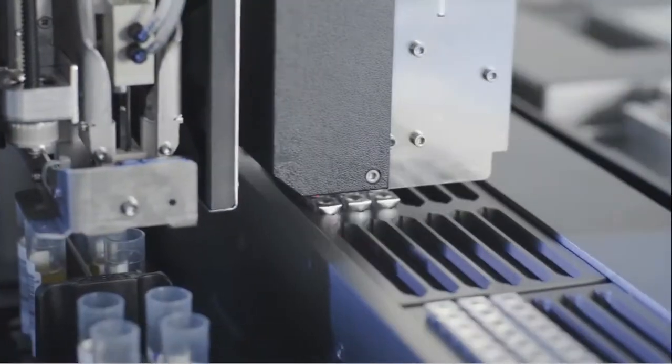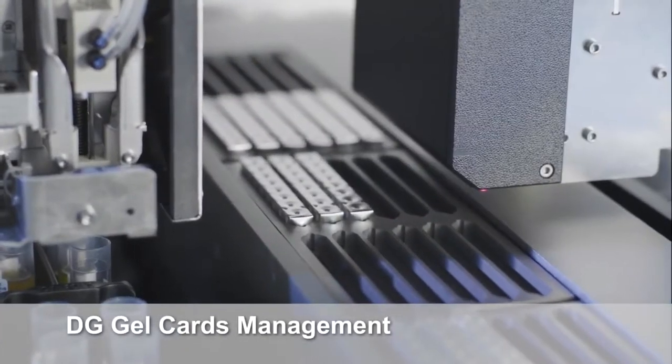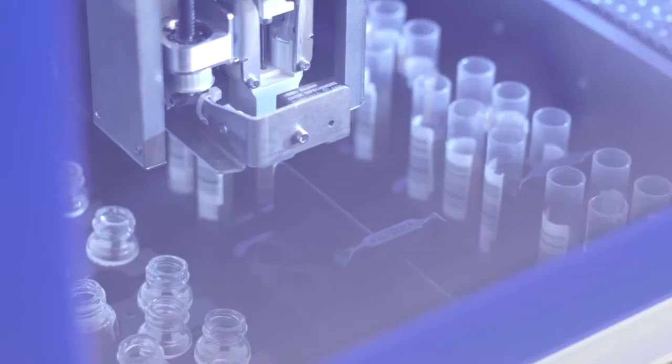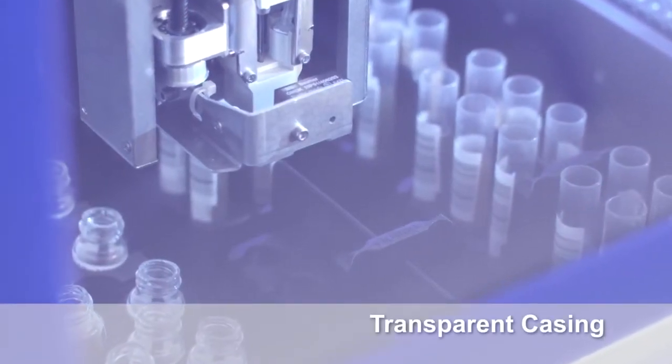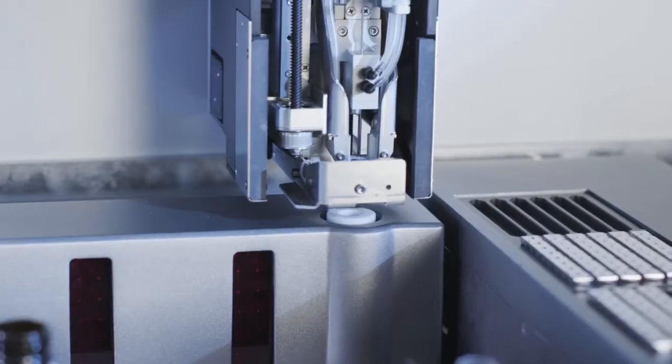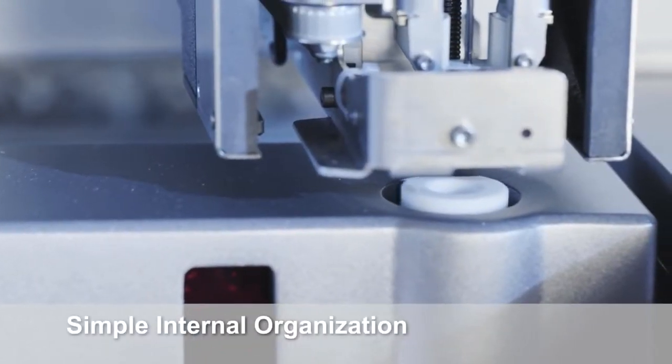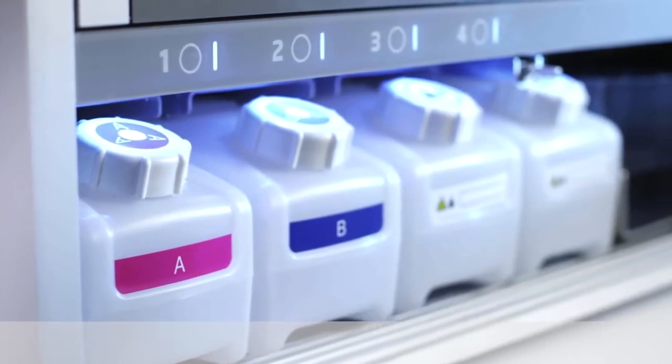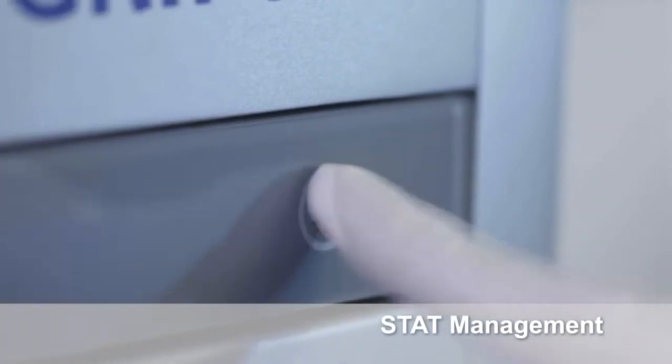Liquid reagents can be randomly positioned. The transparent casing gives you a clear view of the inside processes. The stat samples can be directly prioritized by using the same stat button used on the Erytra.